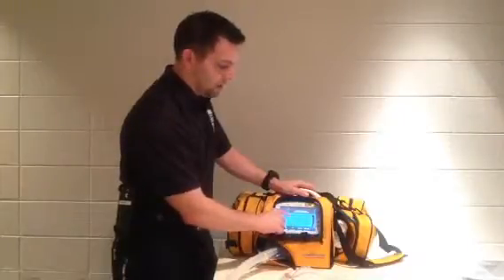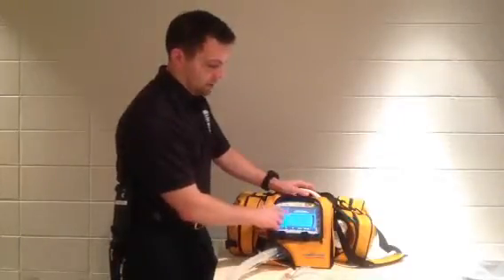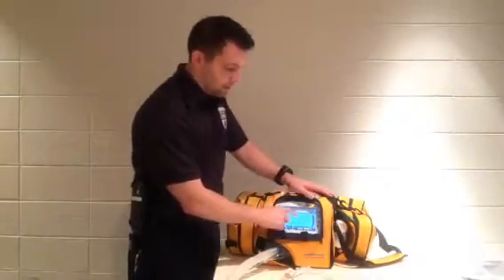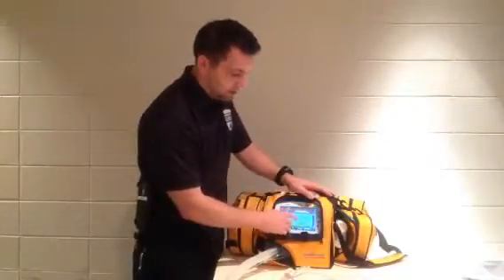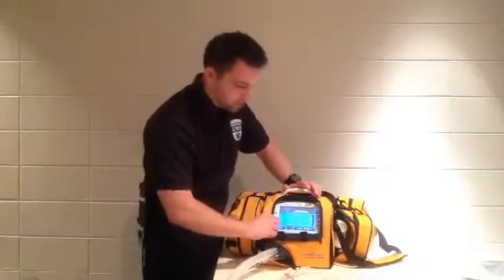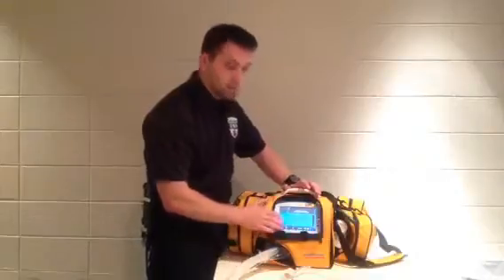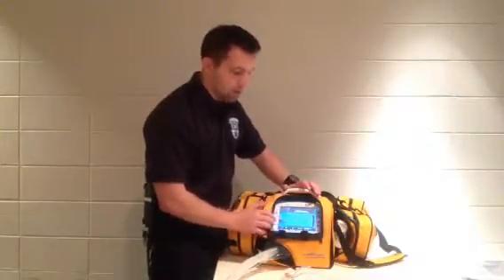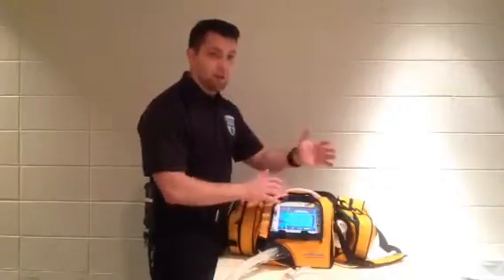In my basic setup, some interesting things to note: I've got my tidal volume VT currently set at 550, or 0.55 liters. I've got my respiratory rate at 18, flow at 75, I-time at 0.4, and a PEEP of 5. The mode is set to AC/I and it's a full touchscreen, so if I tap on it it switches to SIMV or spontaneous depending on what type of vent setting I'm doing.